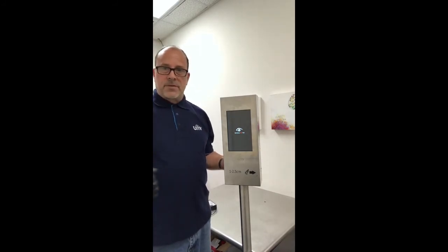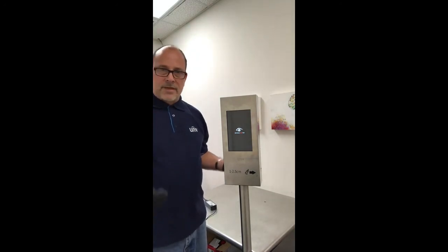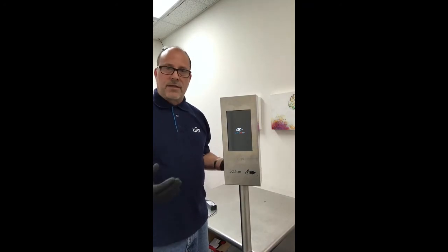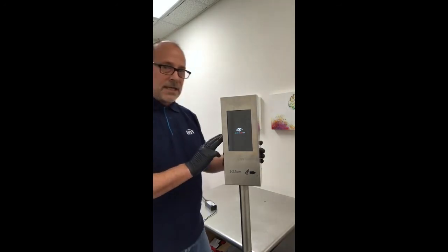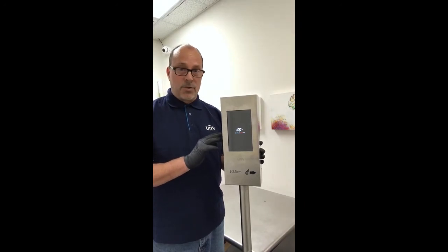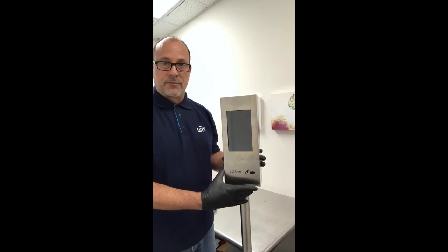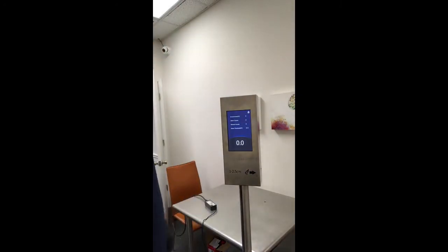Many of you have probably heard about the temperature screening devices being deployed in manufacturing facilities, large offices, convention centers, and transportation facilities. We do carry several models. The OTC513 is a very simple, easy-to-deploy standalone unit that we've already placed in several facilities around the country. And as you can see, the unit is booting up now.